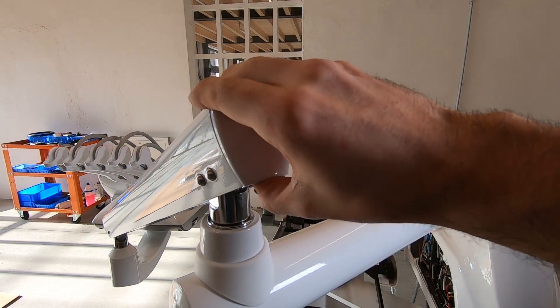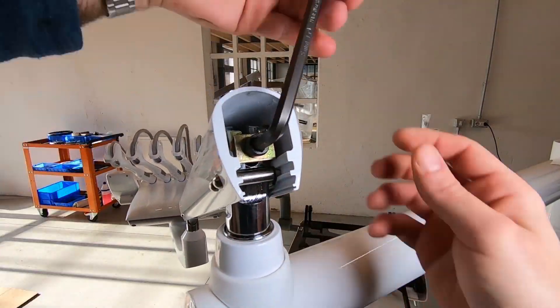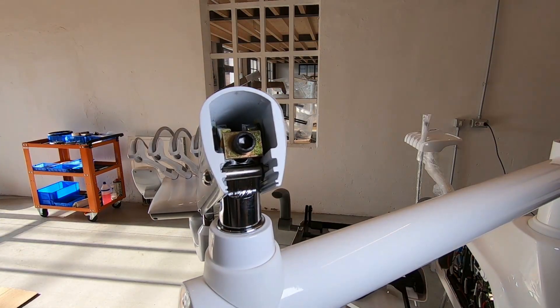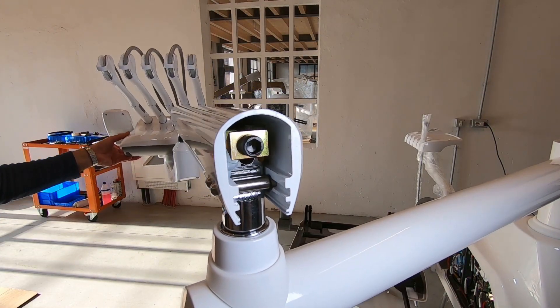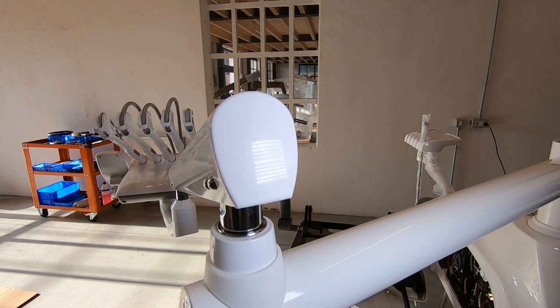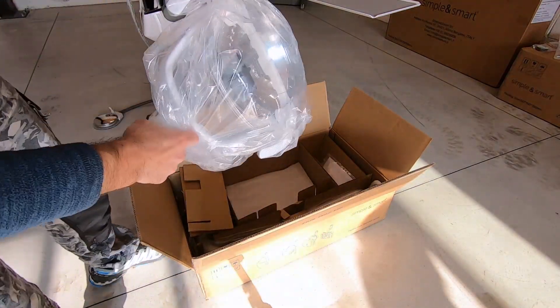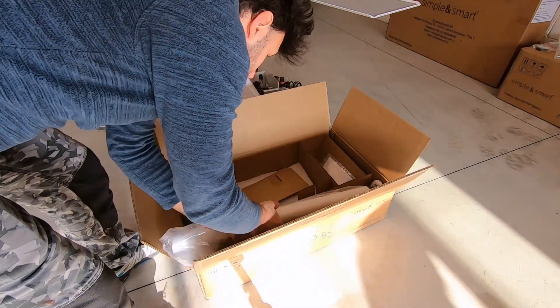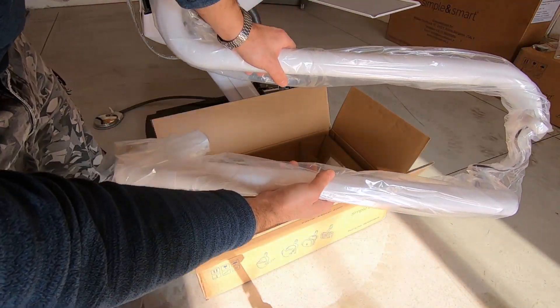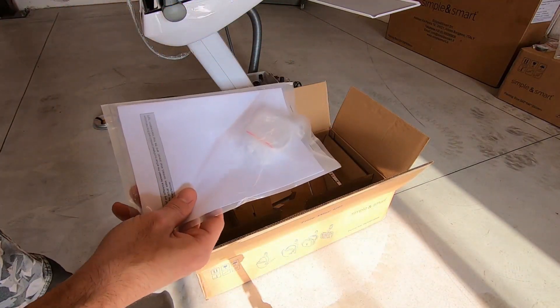Regulate the second part of the arm to compensate for the weight of the doctor tray. In the lamp box there are the lamp head, the lamp arm, and the lamp ring.